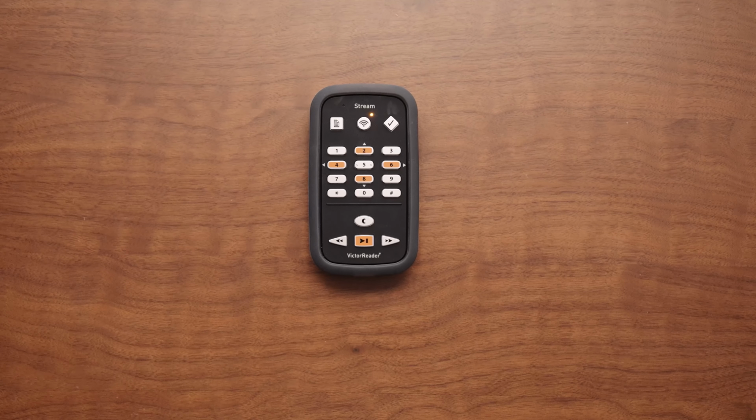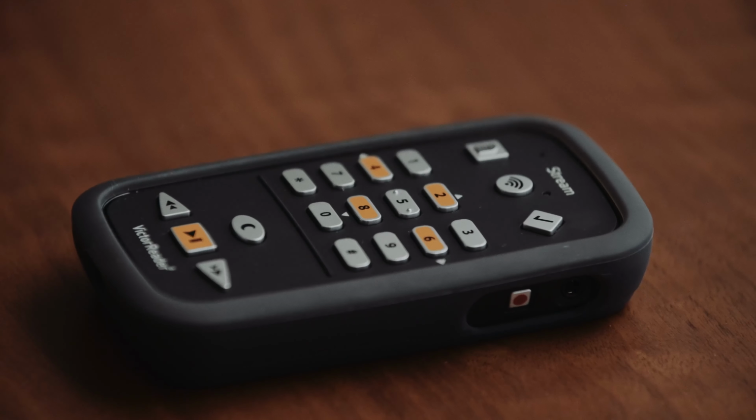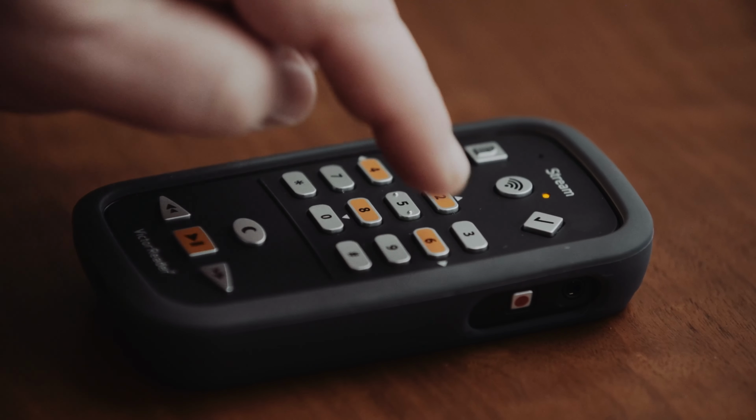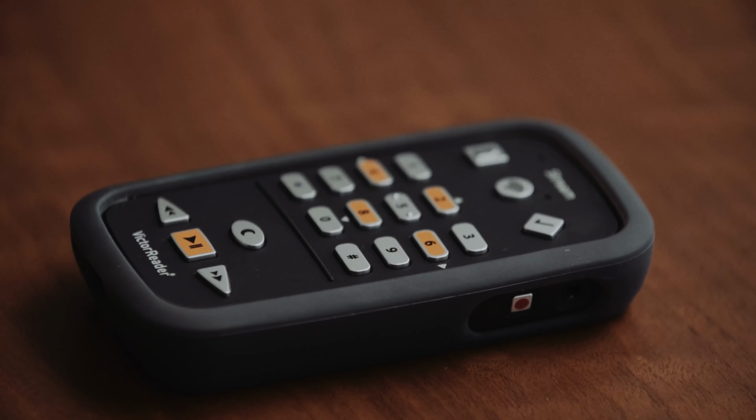11. When successfully connected to the Wi-Fi network, the VRS announces it is connected to the network. You will then be prompted to enter an optional nickname for the network. 12. Enter a nickname for your network and press the confirm key # or bypass this option by pressing the confirm # key.